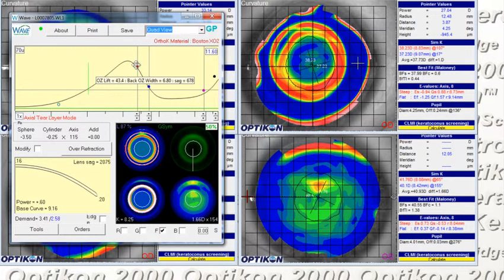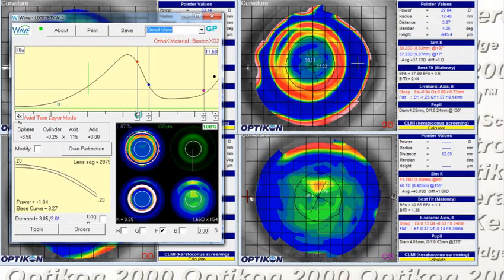OZ was originally 6.2 and IC 6.8, and they naturally moved back when we changed the diameter. It also changes our lens thicknesses, so don't forget to reset that. And it also changed our power because all it did was move the zones back, but it didn't adjust for sag demand. So we still need to increase this to about one and a quarter. We do have a little bit of toricity where the power is not very even, so I'm just going to tune that up.